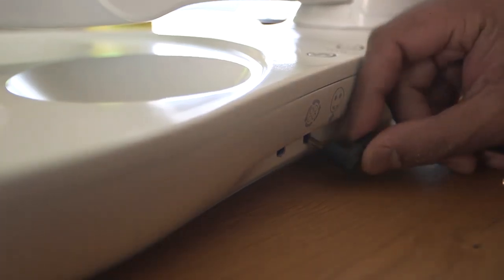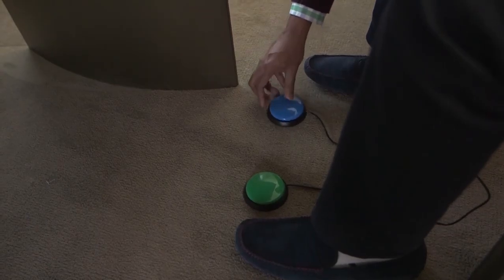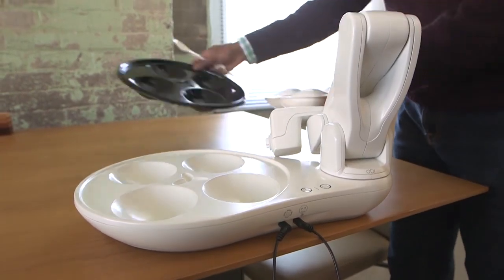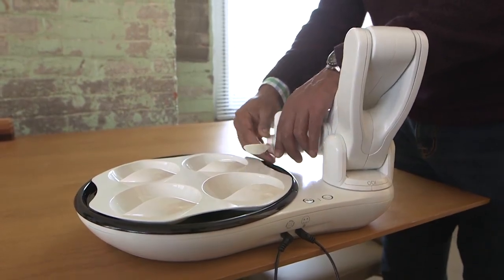Insert the activation switches for the user and place them within the most accommodating region. Next, move the arm to an appropriate position, insert the placemat in the right orientation, place the plate with food in it, and then attach the spoon.